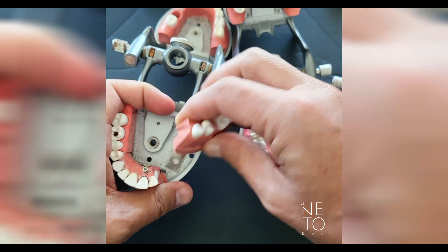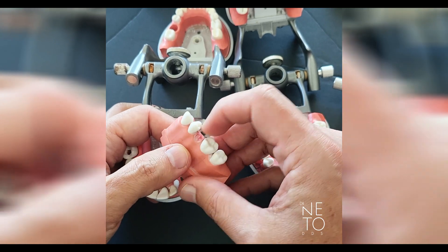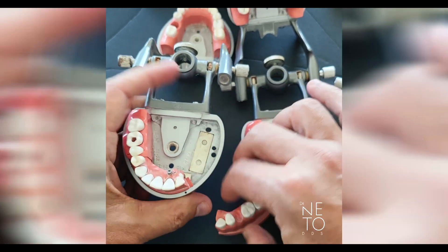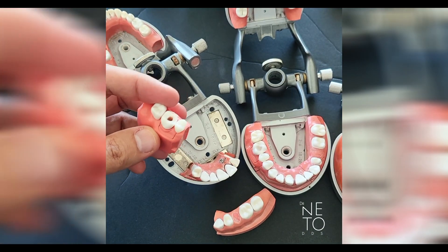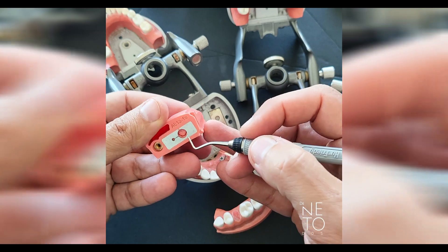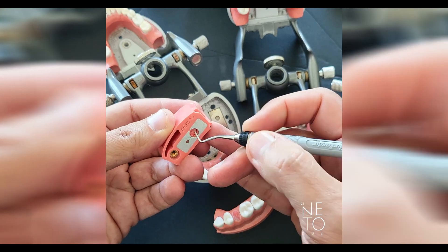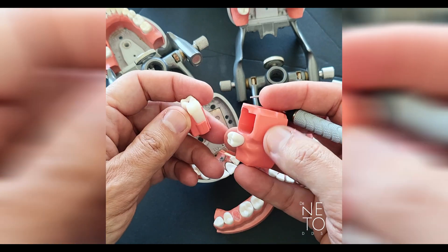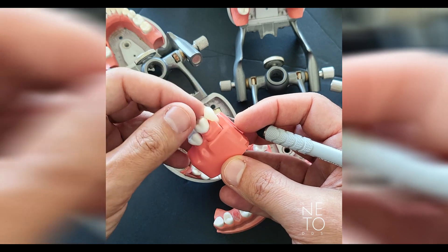The M200 comes with sections. For number four it comes with a missing number four and a cover for the socket. You can change the teeth segment here. It also comes with another segment where number 13 and number 14 come together. Number 14 is the one you'll just do endo opening on. To remove it, you don't unscrew — you come to the back, press this part, and the whole segment comes out.